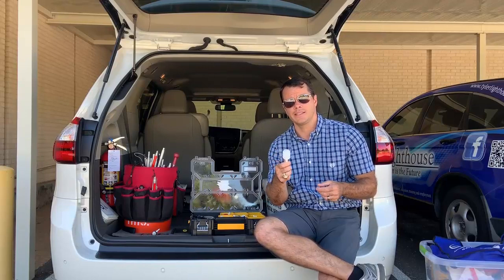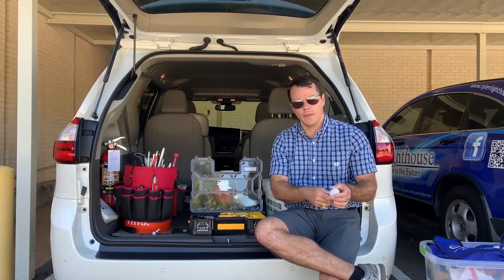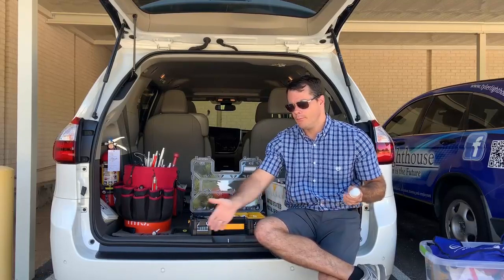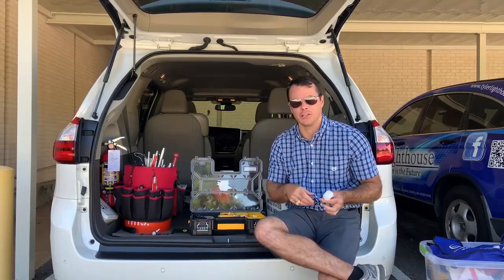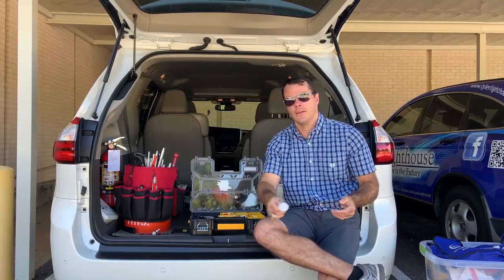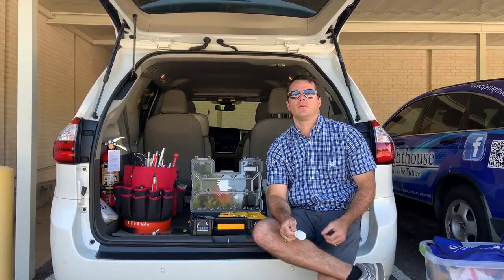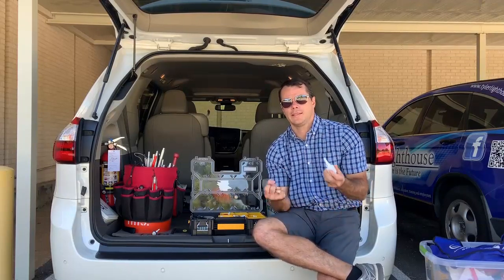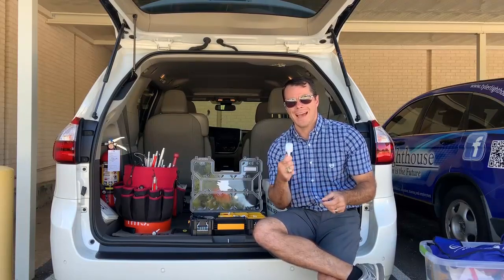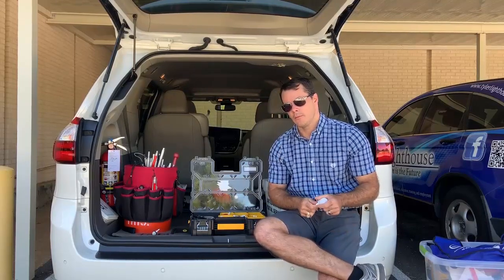The rolling marshmallow tip is intended for constant contact and is great for small kids, because it kind of assists with the glide and movement of bringing that cane from side to side. It kind of encourages cane coverage at an early age and it's just easier for the beginner. This is also good for some of my adult clients that may be dealing with neuropathy — a lack of sensitivity in the hands or the feet. This just gives you more tactile feedback, so it may be a good option for that.